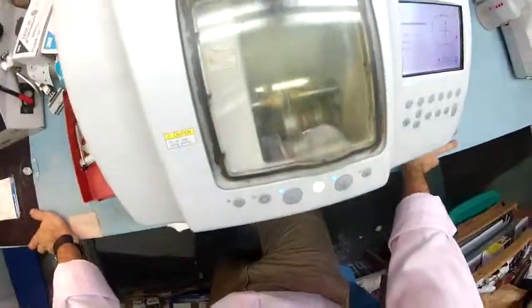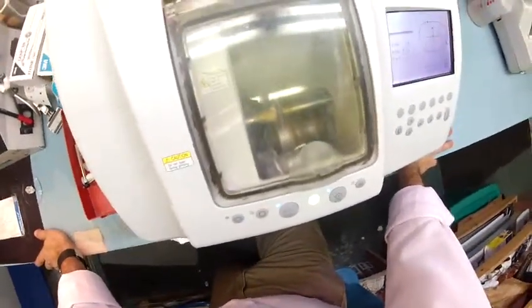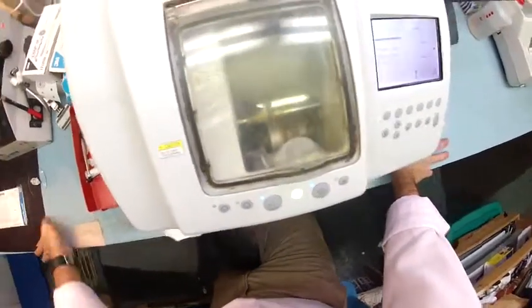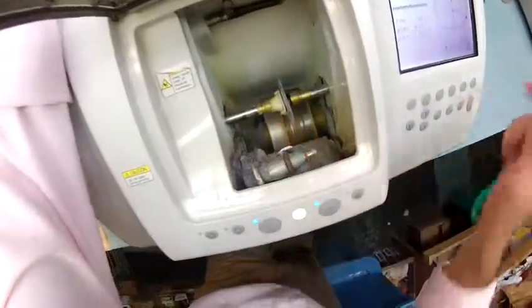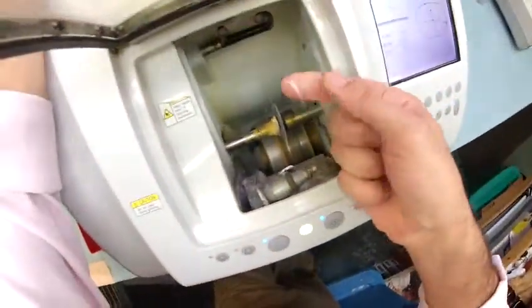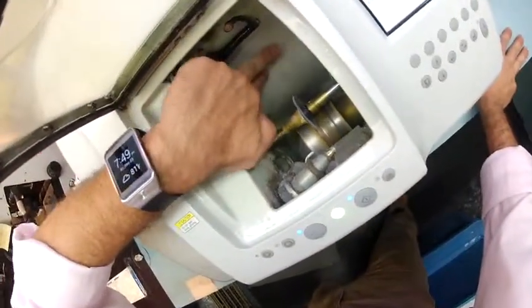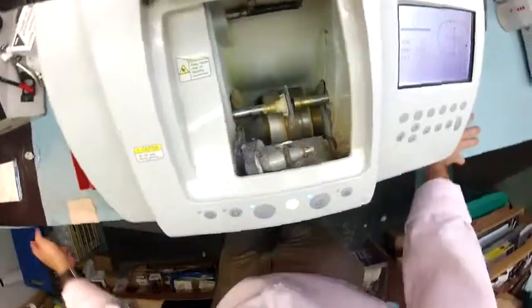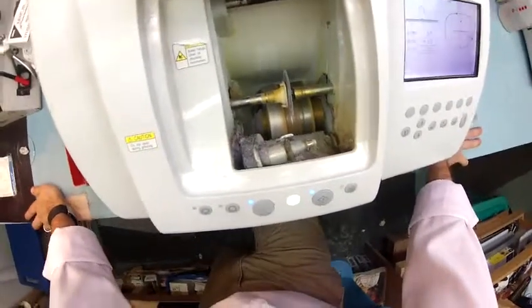Trina in Charlotte — my birthplace. I was born at Charlotte Memorial Hospital on November 21st of 1966. We just had May 21st a couple days ago — that was my half birthday as a kid. If you notice, the lens is completely flat — like a nickel standing on the counter — and now it's getting the bevel. Polycarbonate cuts dry where plastic and high-index cut wet. In just a moment, water jets will kick in to wash away any optical sawdust on the lens.